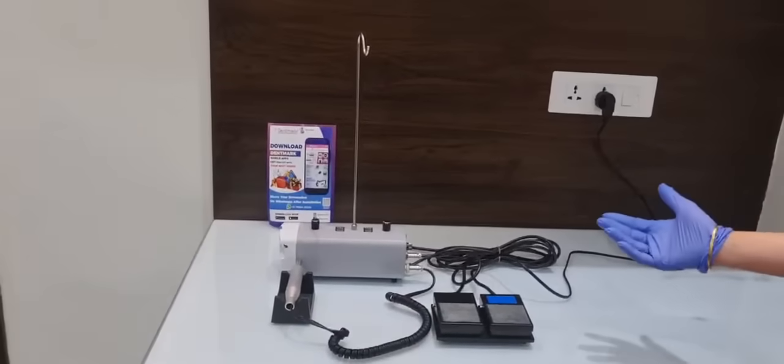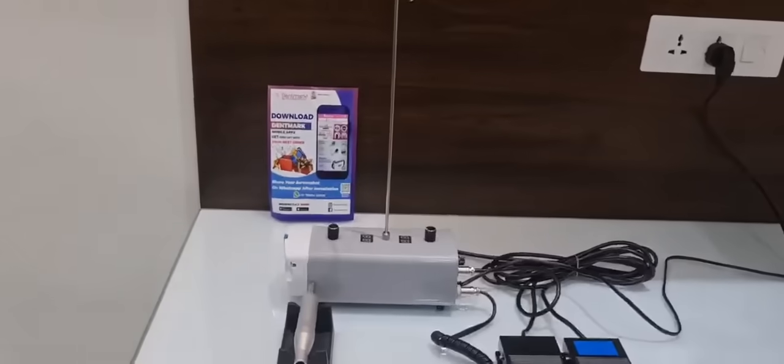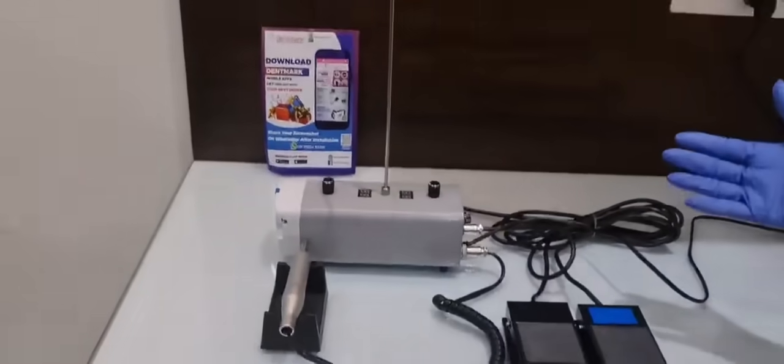Greetings Dentmark viewers. Today we are going to watch another video of one of the new products by Dentmark. This is a surgical brushless E-type motor.